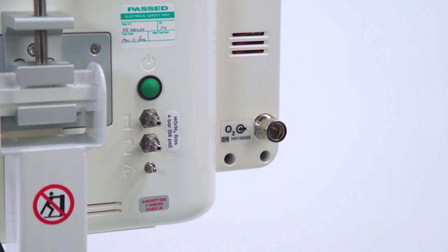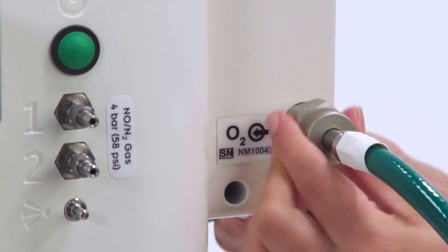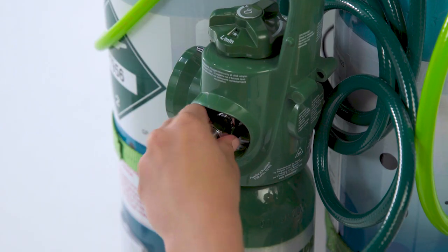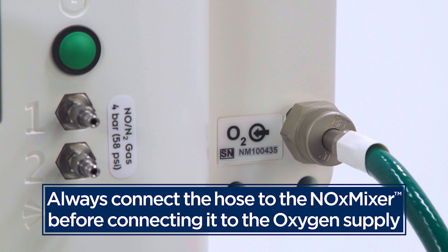You can change the NOxBOXi system operation from intelligent mode to manual mode with the turn of a switch. Here are the steps to take for manual bagging. First, make sure the oxygen hose is connected to both the NOx mixer and an oxygen supply, either a wall outlet or cylinder. Always connect the hose to the NOx mixer before connecting it to the oxygen supply.